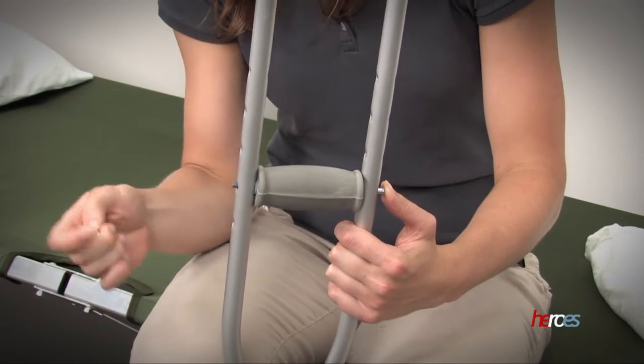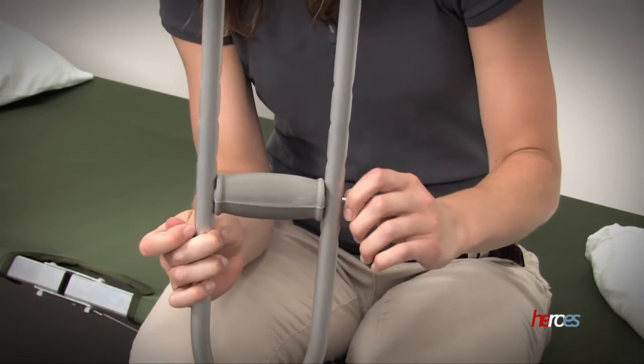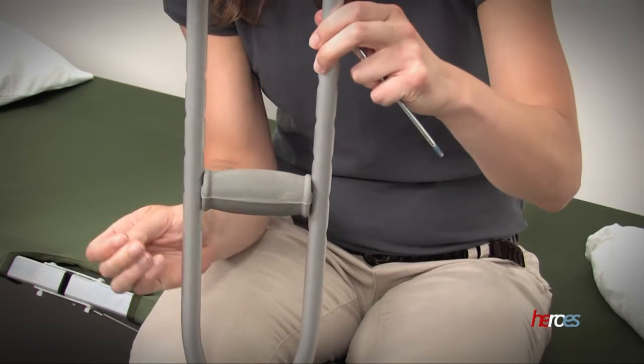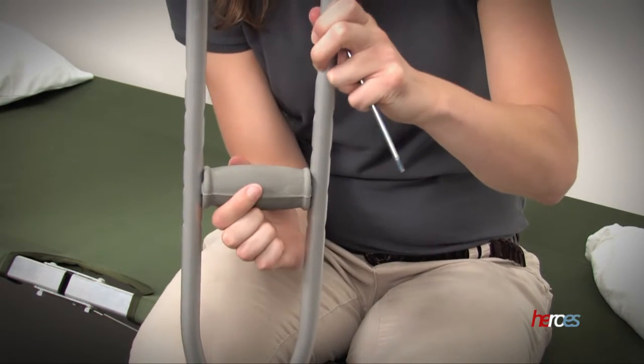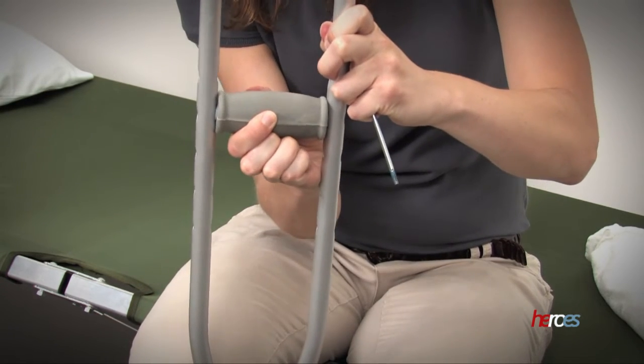If necessary, adjust the height of the handles to the correct wrist position. Make sure that both crutches are set to the same height.